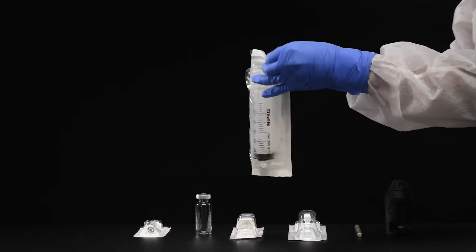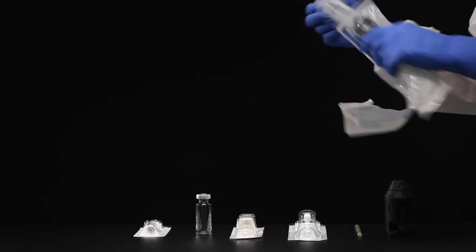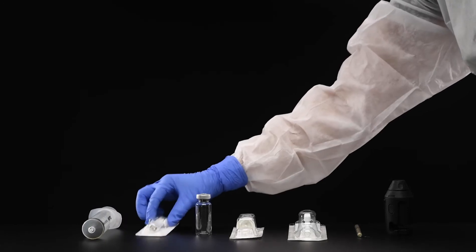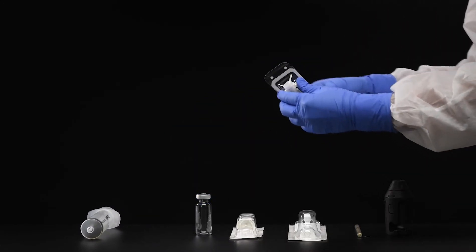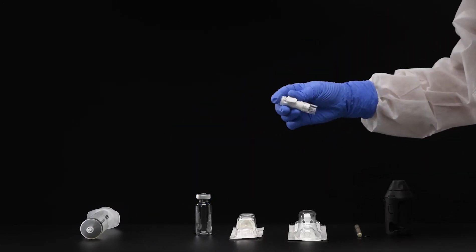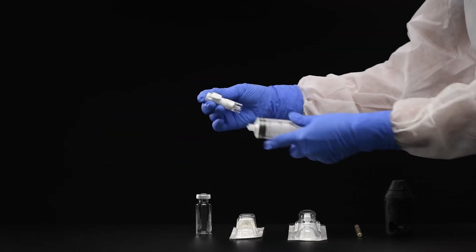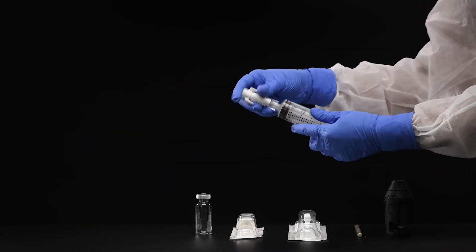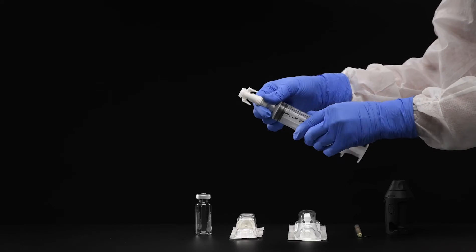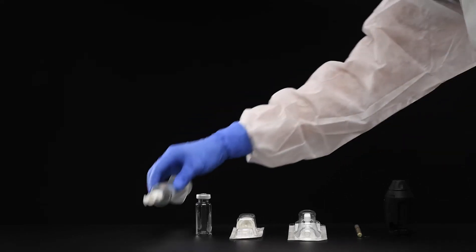Remove the syringe and CHEMFORT syringe adapter from the package. Connect the CHEMFORT syringe adapter to the syringe and remove the cap.